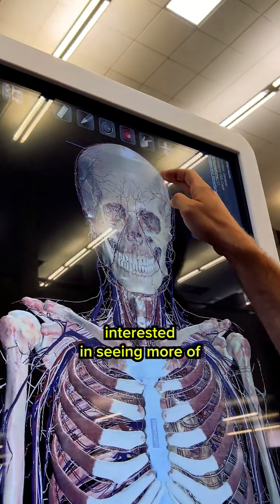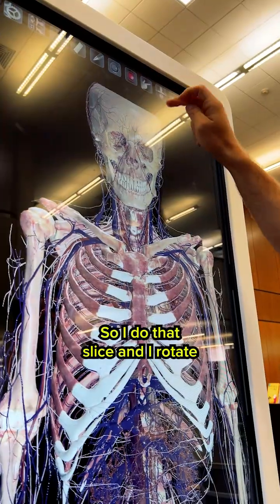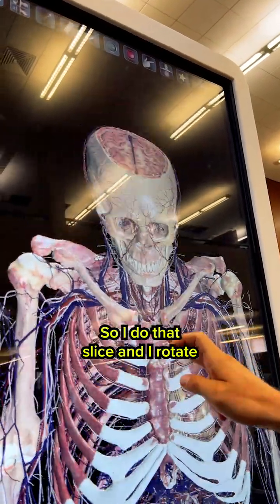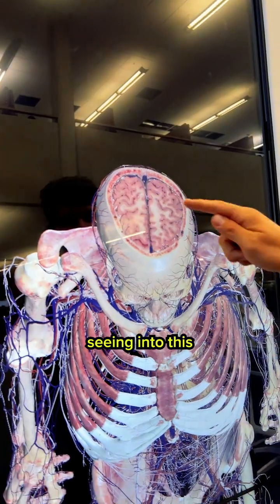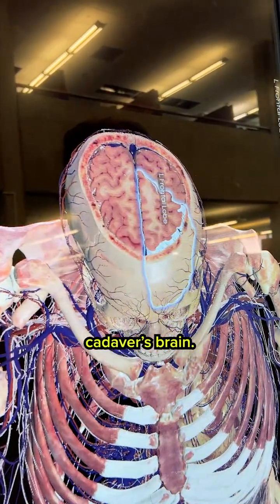So let's say I'm interested in seeing more of the brain here. I do that slice and I rotate and I can start seeing into this cadaver's brain.